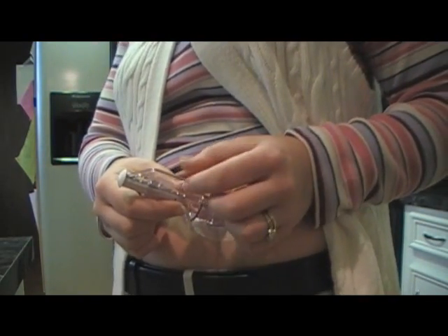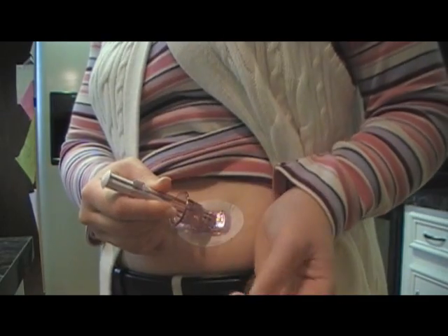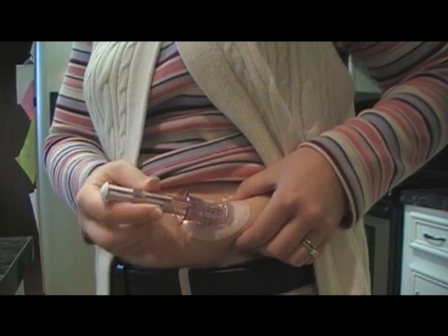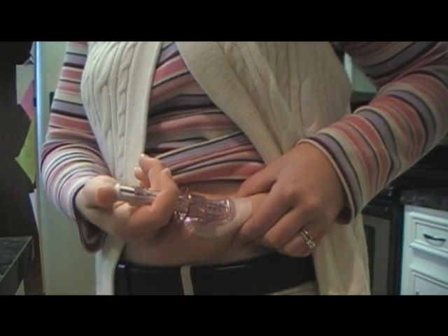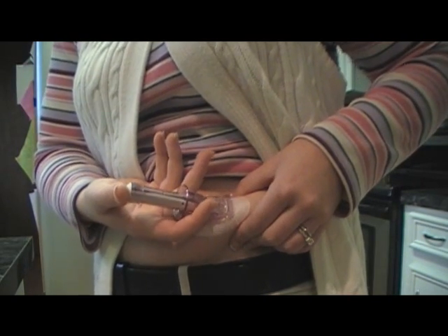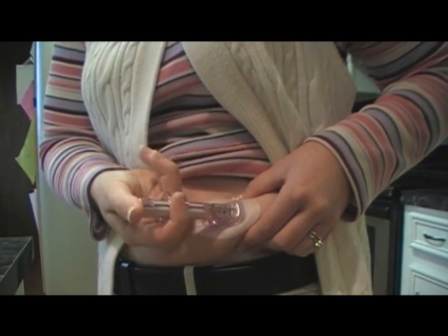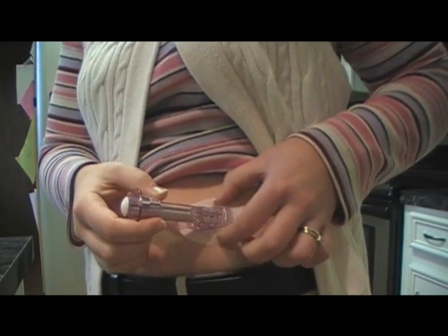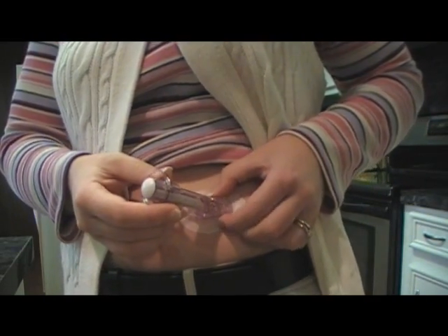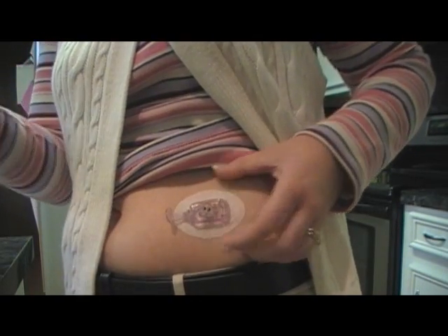Remember this little thing? You just take it and hold this part firmly, then pull it out straight like that. Pinch up your skin and push it in with this part. Then you grab the collar — just make sure you don't grab the collar whenever you're pushing in the sensor. Then you just pull it back. There are these wings right here — push those in, then rock this forward and pull it out. That's it.